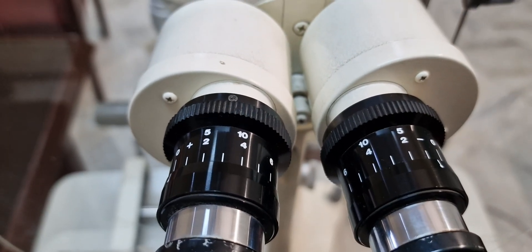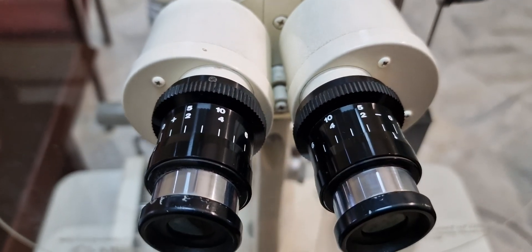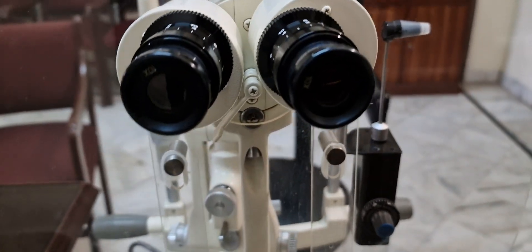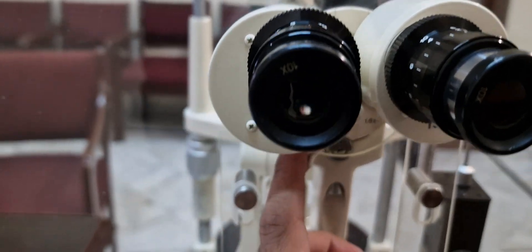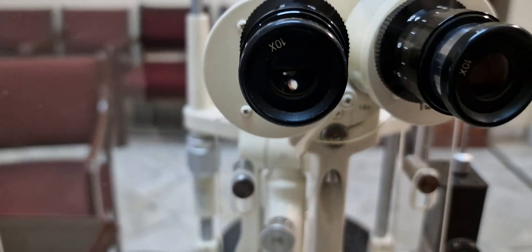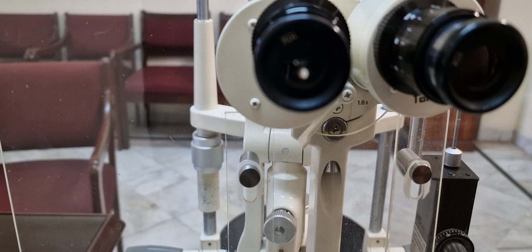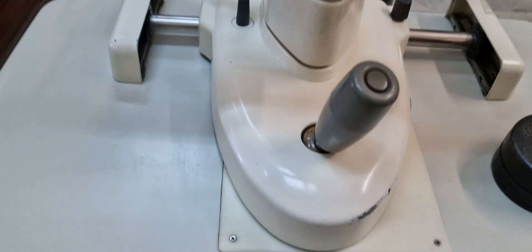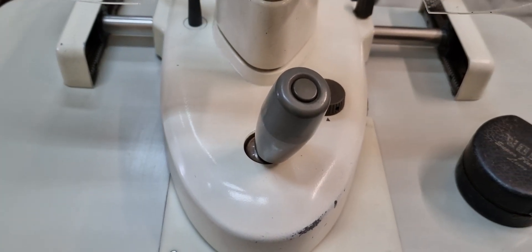These markings are used to adjust the prescription of your glasses. Now below, you can see there is a step present. This step is called the magnification step. This is a two-step magnification slit lamp. We can move it either way so we can see an enlarged image.